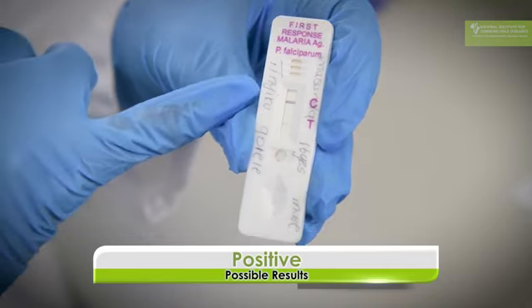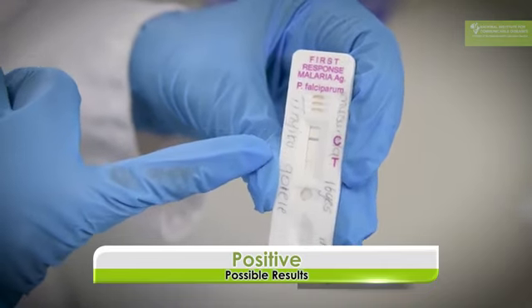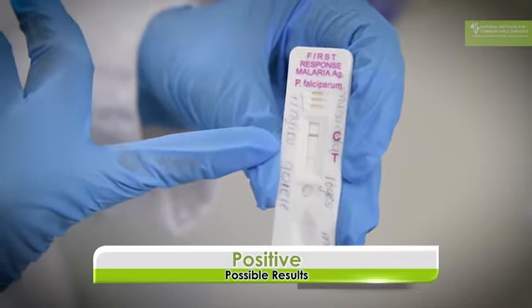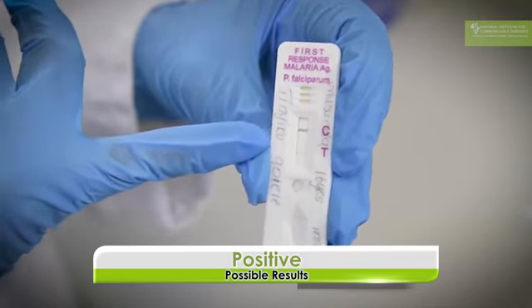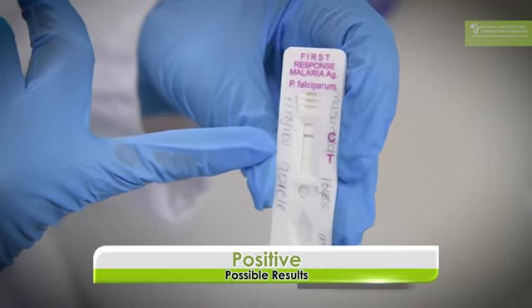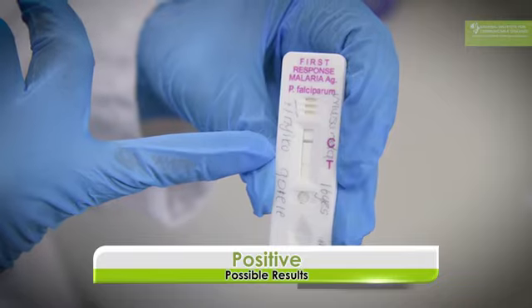Now this is also a positive result. You can see a very clear control line, however the test line is very faint. But even if you get a faint test line, you have to call it positive because anything that comes up at the test line indicates that there's a malaria infection, so you have to call this a positive test.